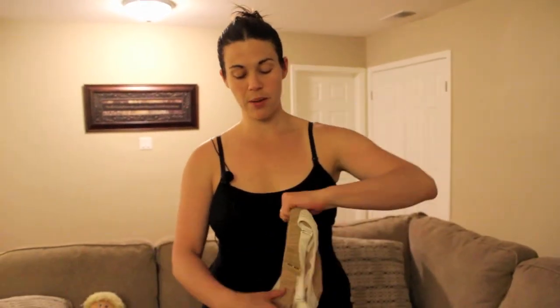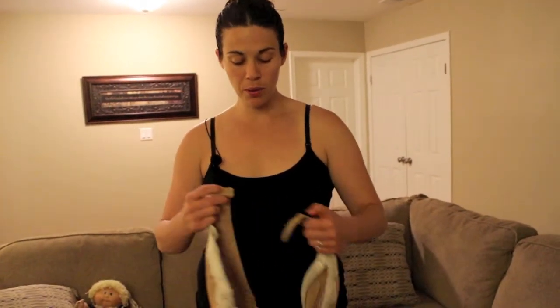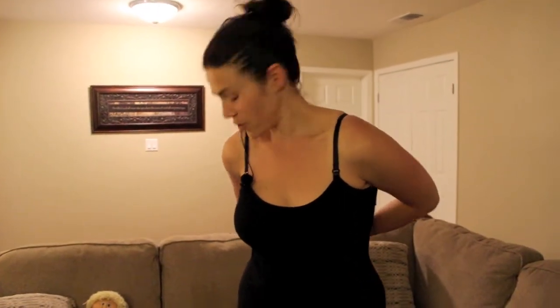Hopefully it's not too personal — I'm going to go ahead and just put it on over my tank top here so you can kind of see how this works, to get a better understanding of why I think it's so wonderful. I've used a couple different nursing bras. This is the only double hands-free pumping bra I've used, but so far this is my favorite for several reasons.